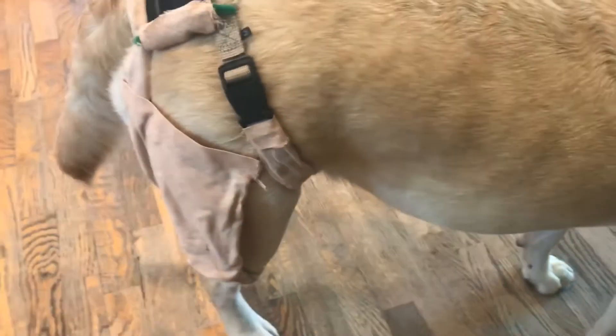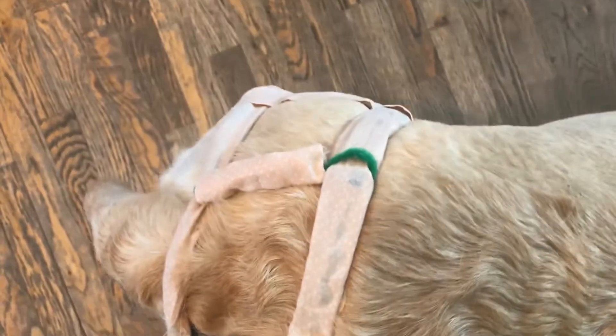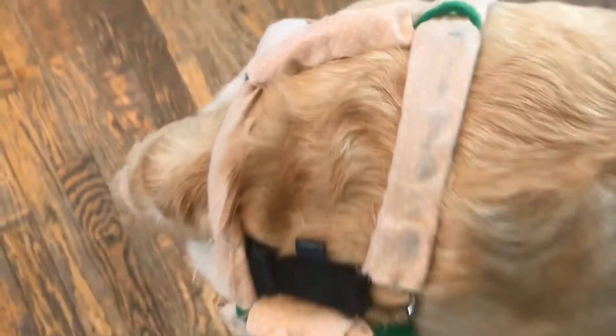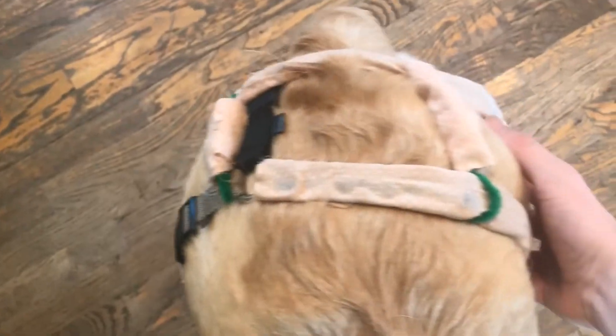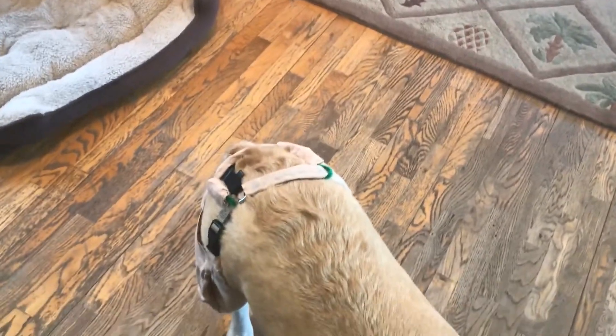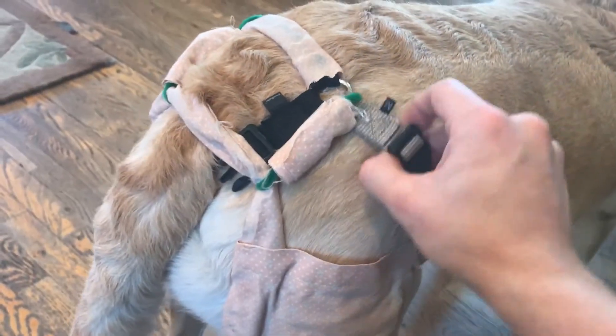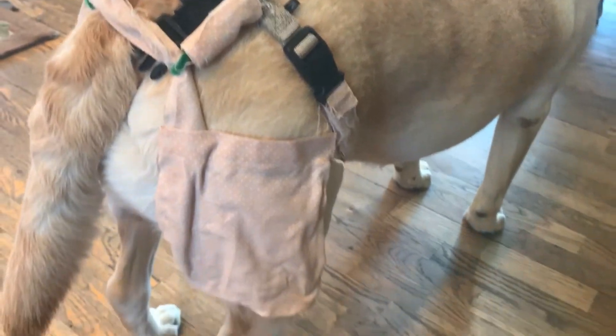What we can see here is the concept prototype of my orthopedic brace for dogs. The primary reason that this helps dogs is it pushes in the back legs, putting them underneath the dog and supporting them from below, giving them more structural support. Also, the design lifts up the back legs, removing some of the stress from them.